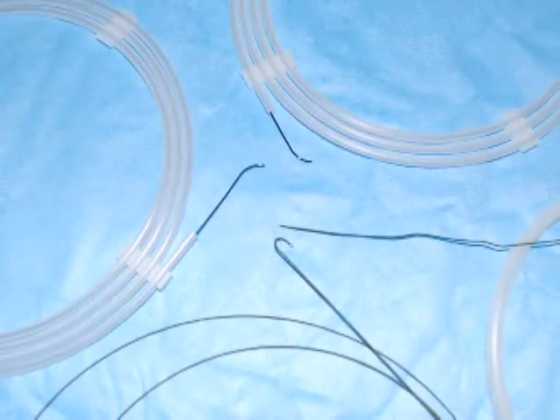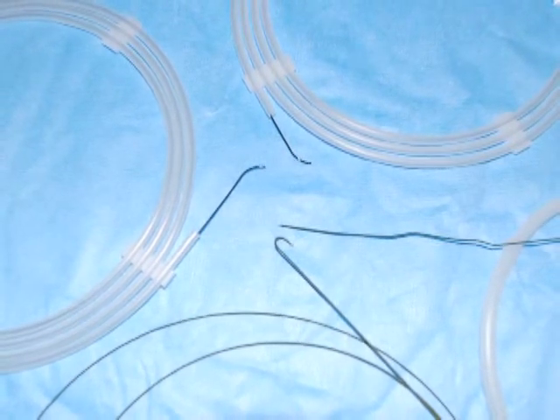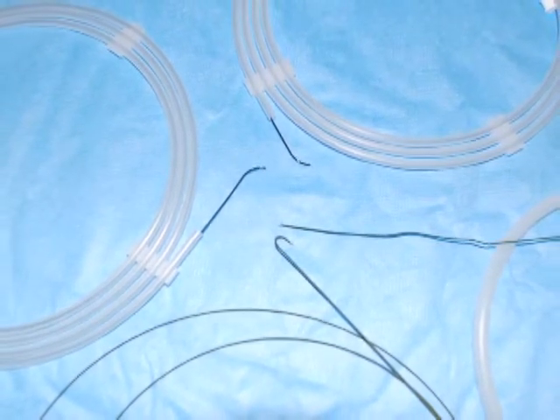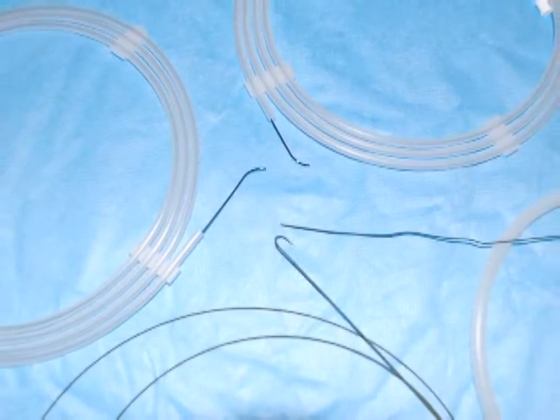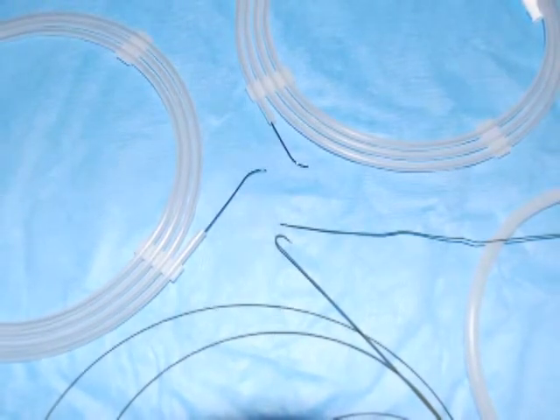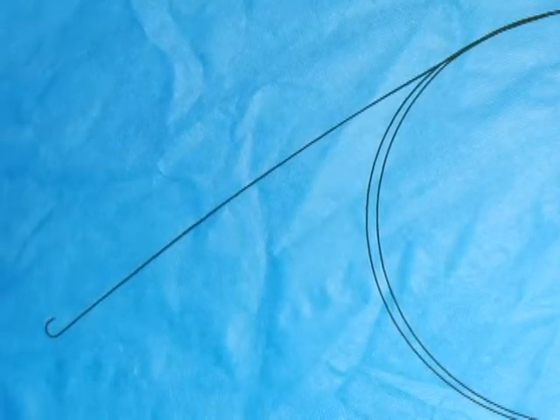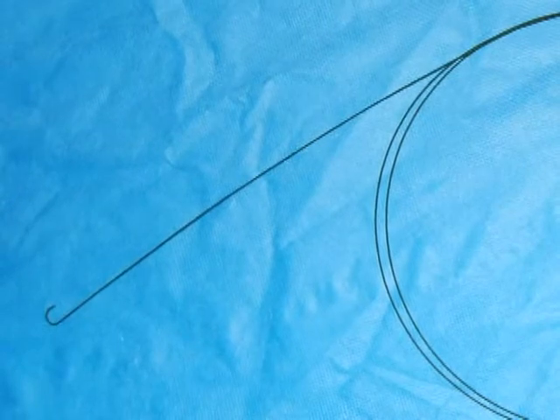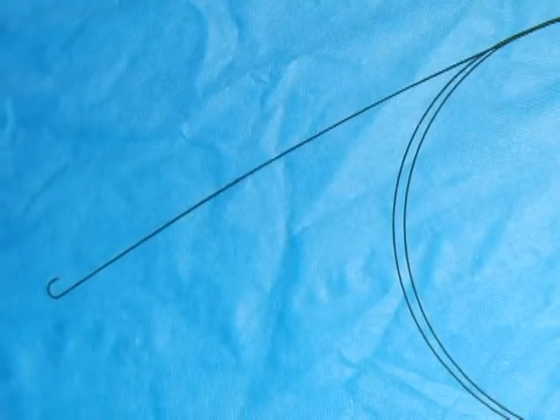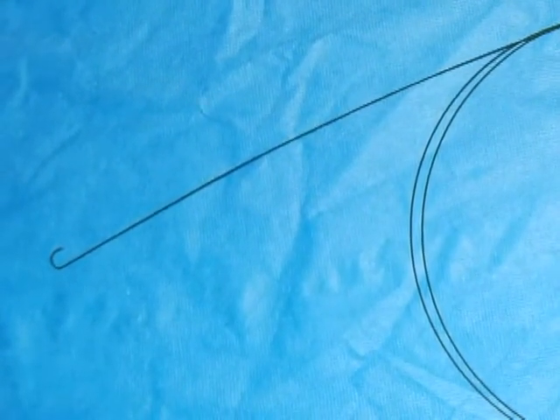These wires vary in diameter, consistency, weight, and strength, and are designed for specific applications. The most common guide wire used is a 0.038 inch flexible J-tipped guide wire in a 180 centimeter length.